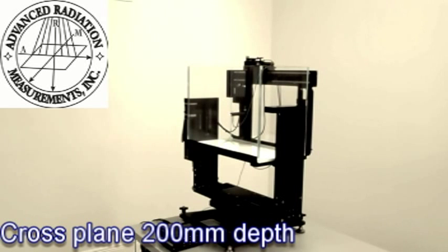Scanning now across profiles of 20 x 20 cm at 200 mm depth.